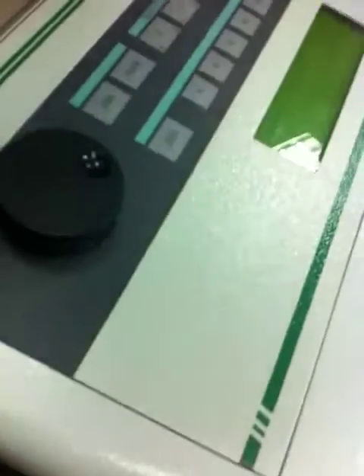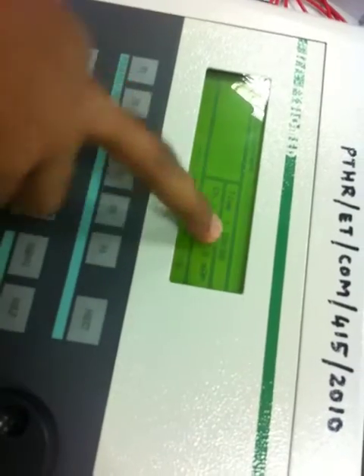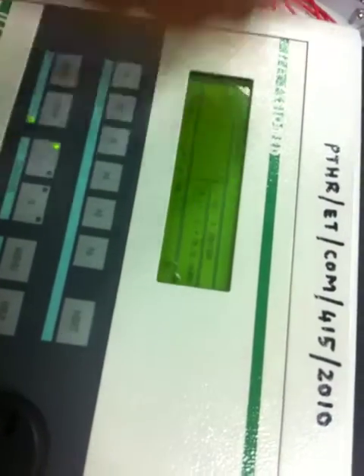There are three types of nerve injuries: neuropraxia, axonotmesis, and neurotmesis. If it is axonotmesis or neurotmesis, what do you select? If I give you the condition of axonotmesis of the lateral popliteal nerve, initially you have to tell me that you will go with galvanic current. The galvanic current is here. Since it is not interrupted, we don't use it — just you have to explain it to me. Whenever I give you axonotmesis, you should know this.